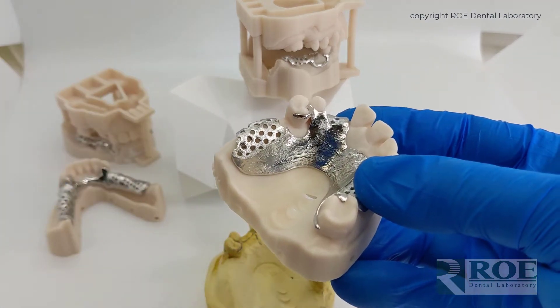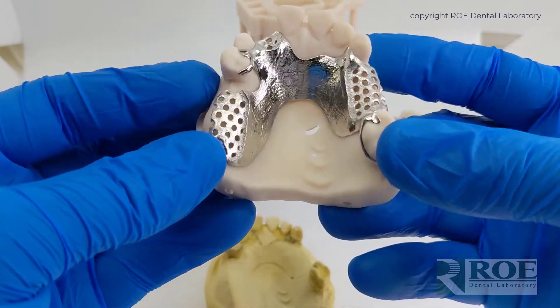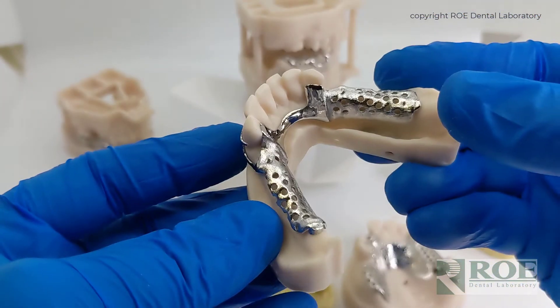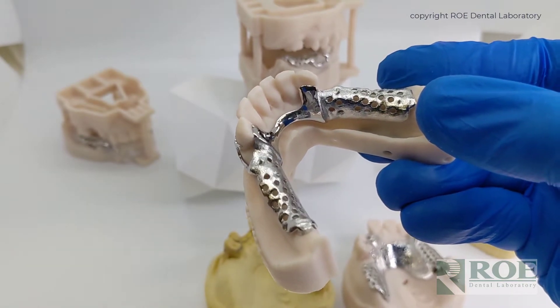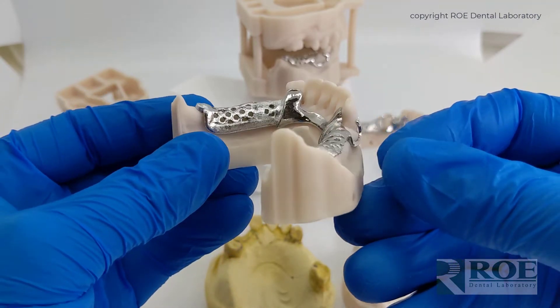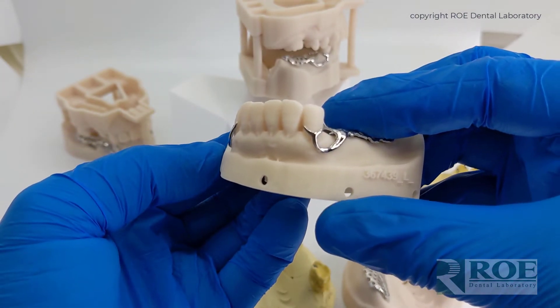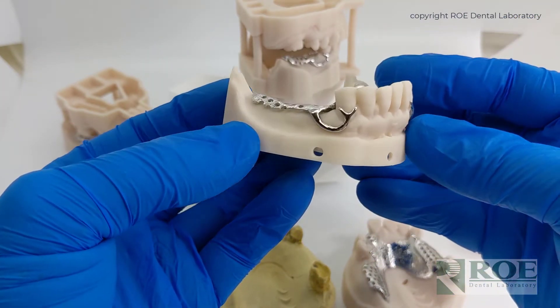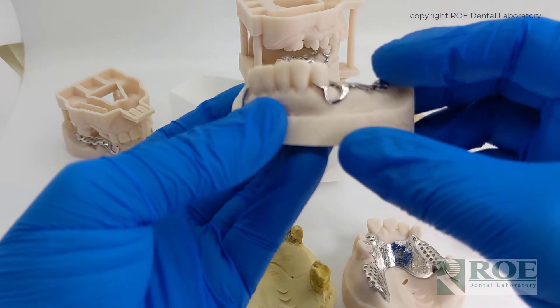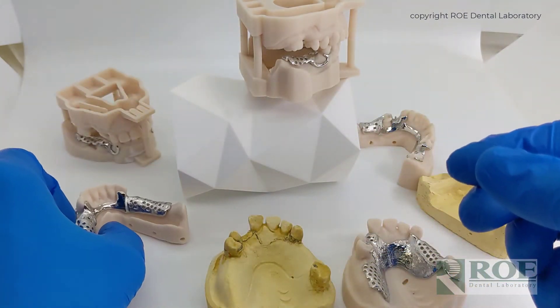And as you can see, these frameworks are very aesthetic. They're well designed — you can see the very nice finish lines, around this nice lower partial: the finish lines, the high shine, the design of it. The computer will make sure that these types of clasps are put in the perfect position for draw and for undercut, for clasping. The software will also make the taper of the clasping and the design of the clasping ideal, following the standards and rules of partial dentures.